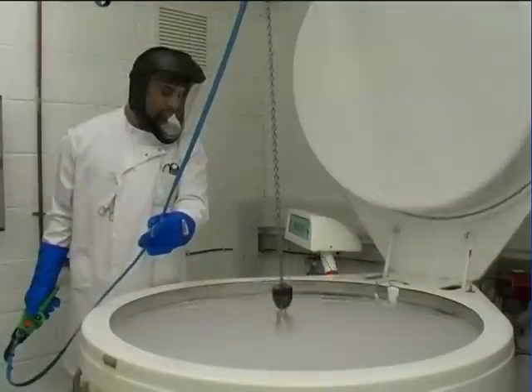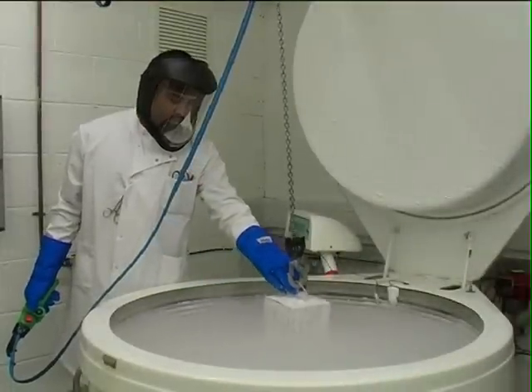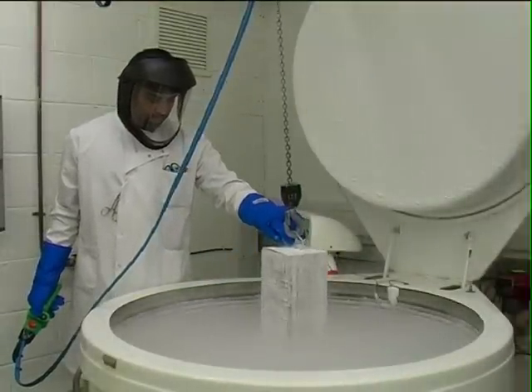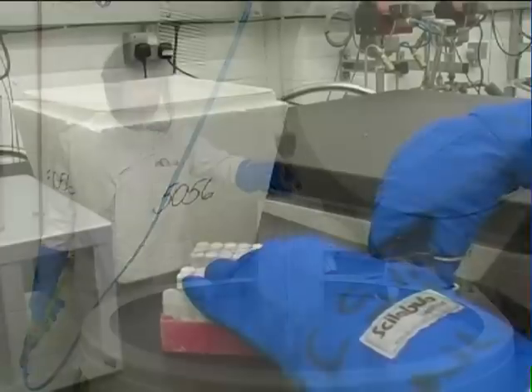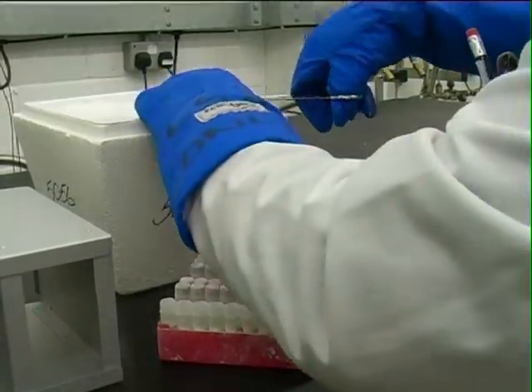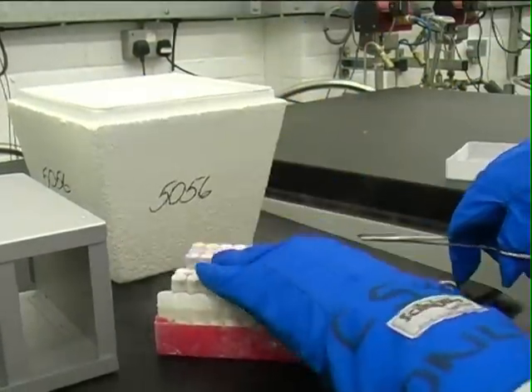We also need some platelets to test the samples against. We store aliquots of our panel platelets in liquid nitrogen vapour. These have been collected by apheresis from HPA genotyped donors.